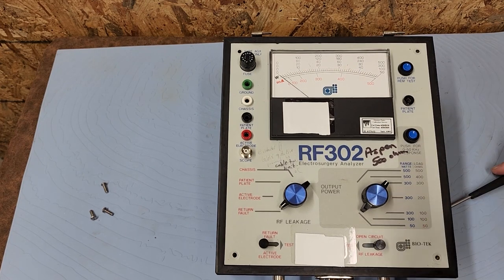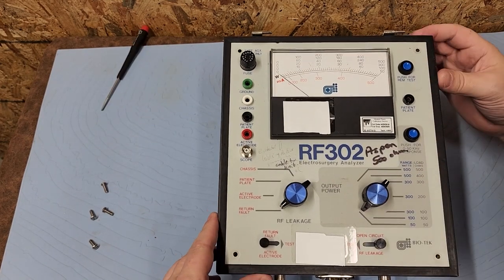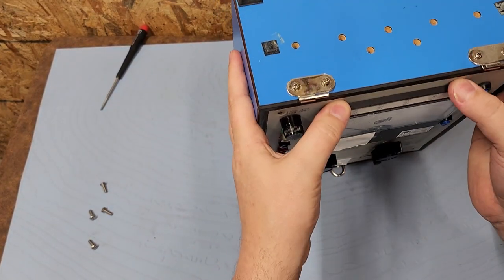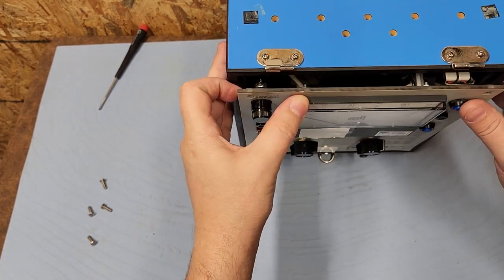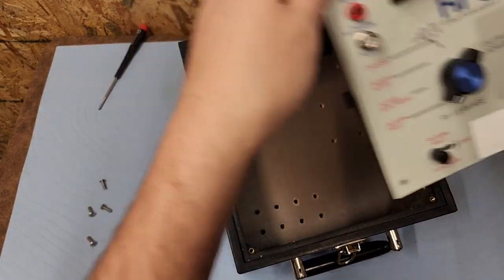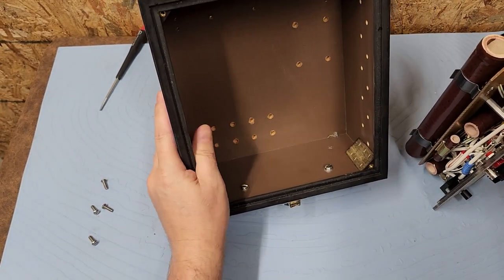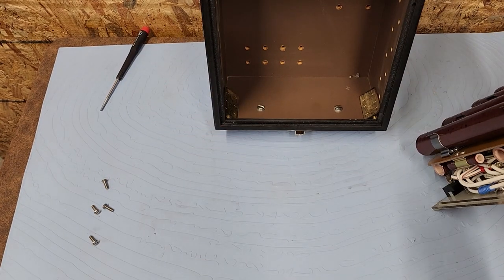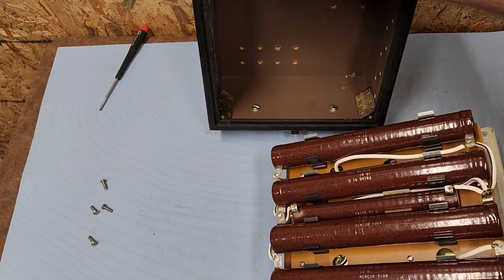Am I really going to hook this up to an ESU without making sure it didn't previously have a fire? Not a chance — my homeowner's insurance would not appreciate catching fire to my garage. All right, here we go. The challenge is how to access the front panel — just two thumbs right here on the top. The case is reasonably well built, smells vintage. This is going to be a cool opportunity to see what is inside an ESU analyzer.